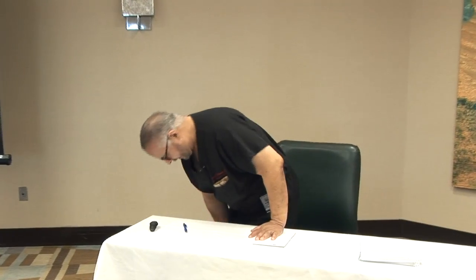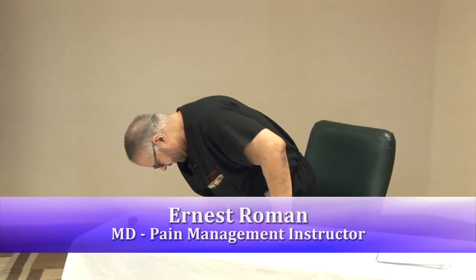Good morning. We're going to start with didactics. The most important thing about operating your ultrasound is to know first how to place the needle in the correct place. If you don't know how to place the needle in the correct place, it doesn't make much sense to consider yourself an expert in ultrasound.